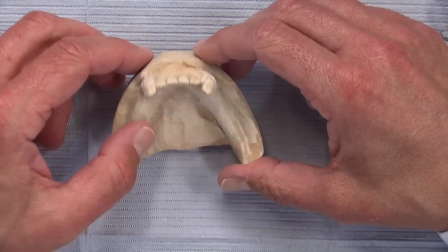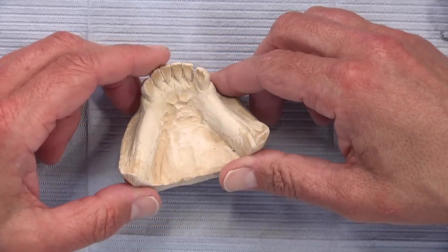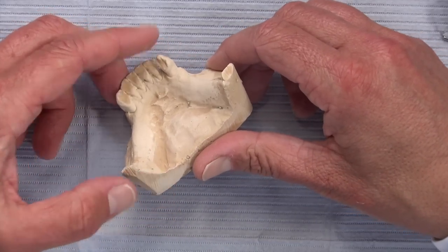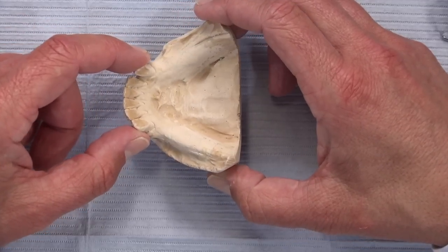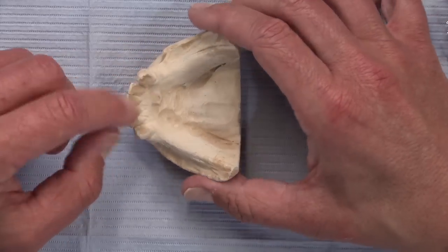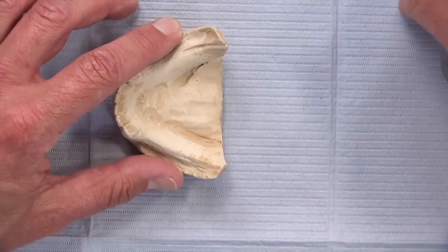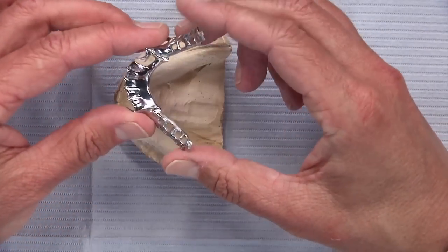The patient only has teeth 22 through 27 remaining; there's no rest preps to speak of — in fact, there are no rest preps — and the doctor has asked for a mandibular partial denture. This patient has already had some tissue and bone resorption, possibly from a prior partial denture, and without a vertical stop this mandibular partial denture will slip down that slippery slope of the remaining anteriors with the poor free gingiva waiting for further punishment and future tooth loss.